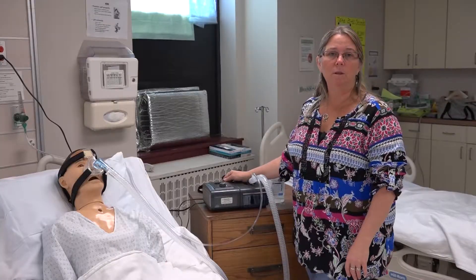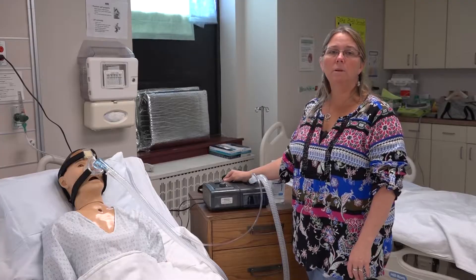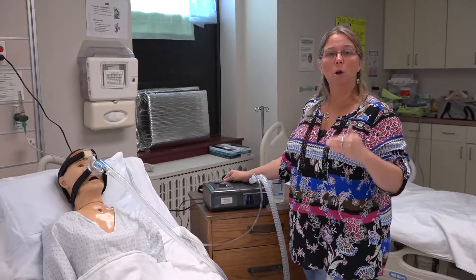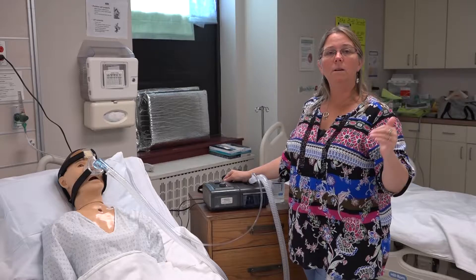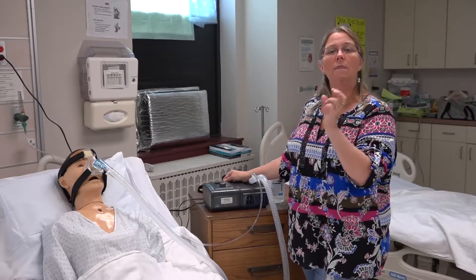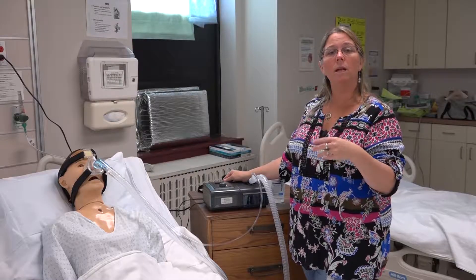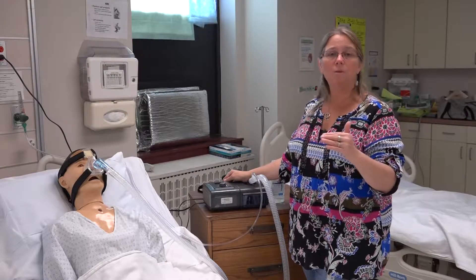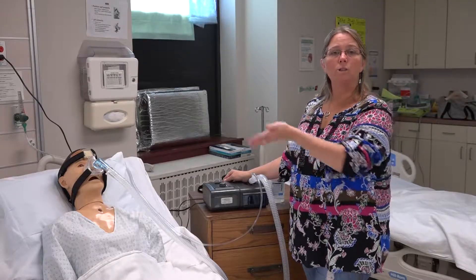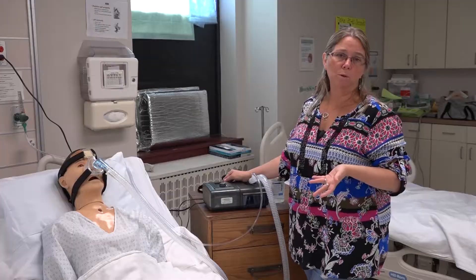Another option available on CPAP and BiPAP is the ramp option. Ramp is where the pressure starts low and builds its way up to the preset pressure. That allows the patient to become more comfortable as they first put it on, drift off to sleep, and then by the time they fall asleep, the pressure has worked its way up — much more tolerable for most patients.